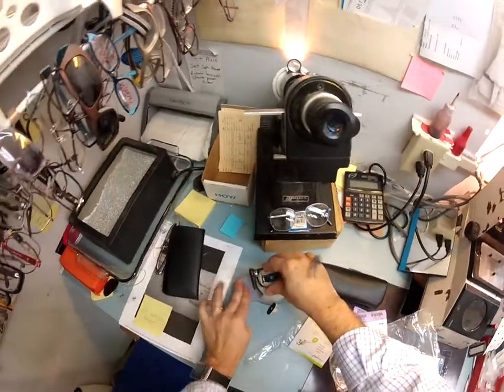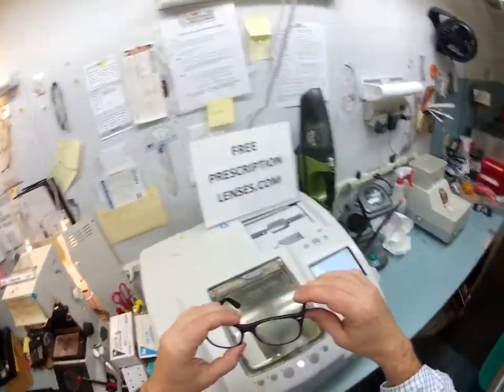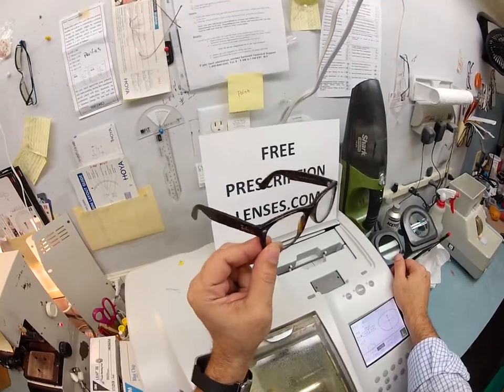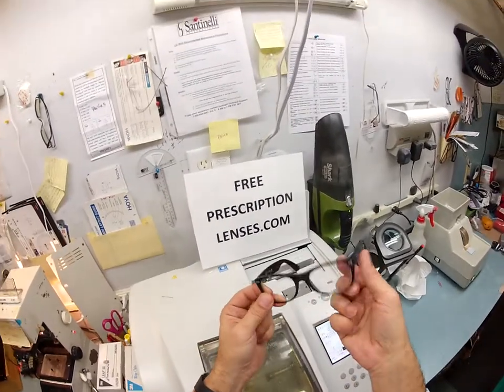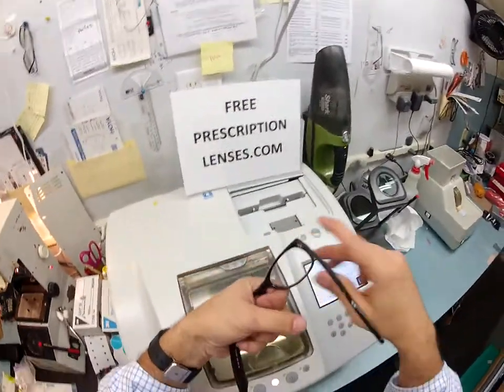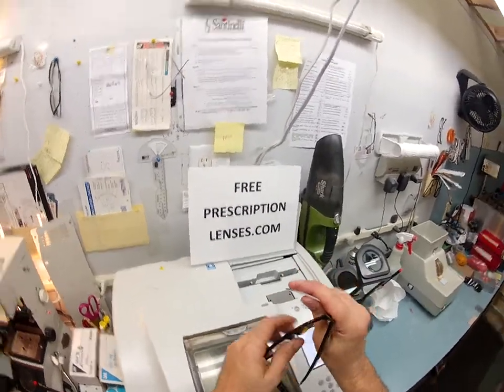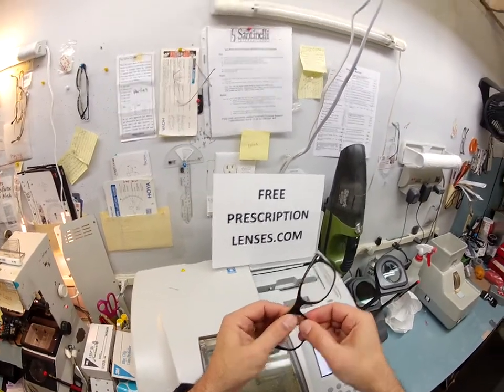In just a moment I'm going to get this in standard alignment before shipping to you. Should you ever need to change these lenses — if you want sunglass lenses or prescription lenses — I can send them right to your home. To take these lenses out, it's always with the thumb pushing down at the nose. I grabbed the frame with my left hand, and using my right thumb I press down at the nose and it pops right out, while reinforcing the frame and pulling back with my fingers. To put them back in, rotate the frame upright, tuck it into the corner closest to me, then using my thumbs press down right there.